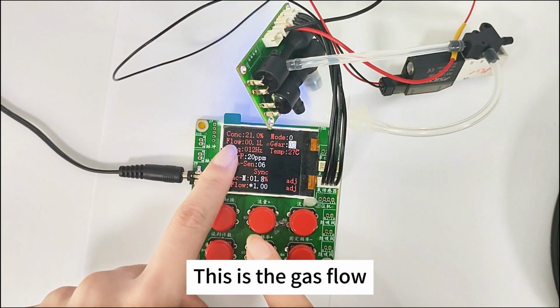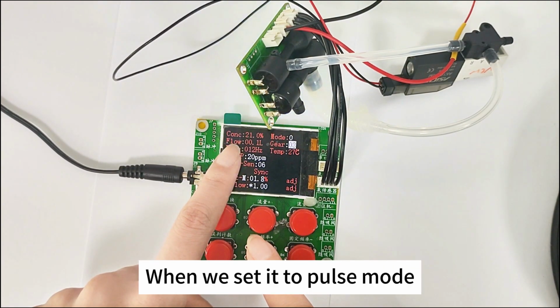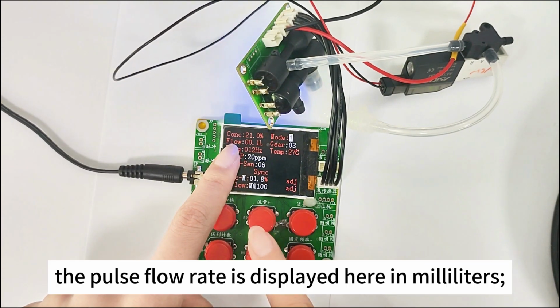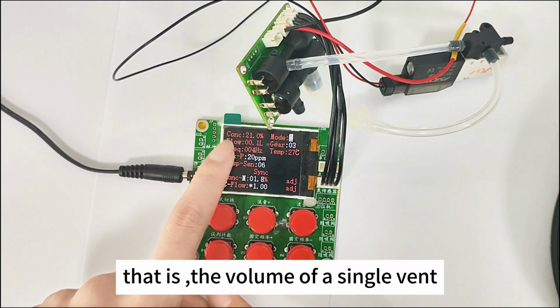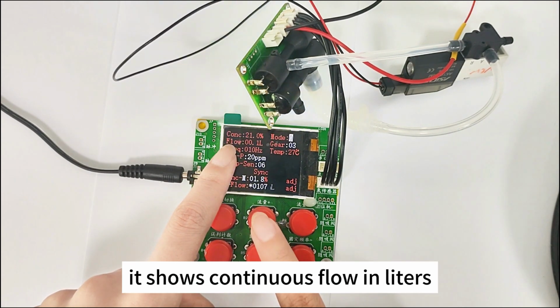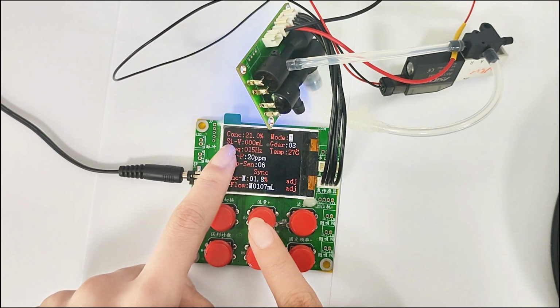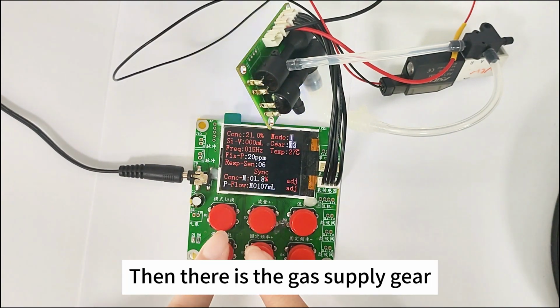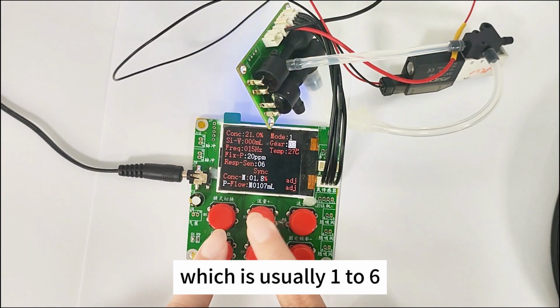This is the gas flow. When we set it to pulse mode, the pulse flow rate is displayed here in milliliters, that is, the volume of a single vent. When we switch to direct supply mode, it shows continuous flow in liters. Then there is the gas supply gear, which is usually 1 to 6.